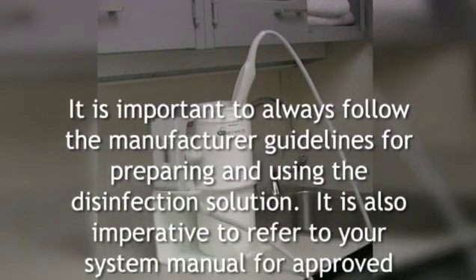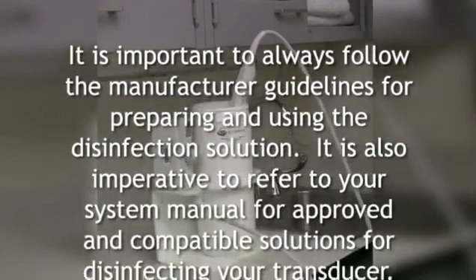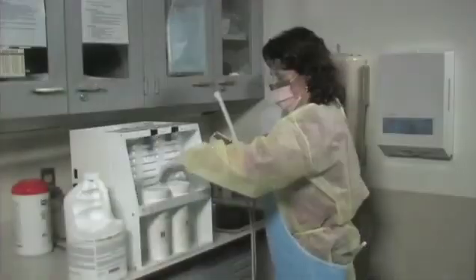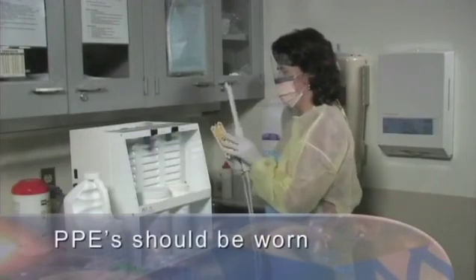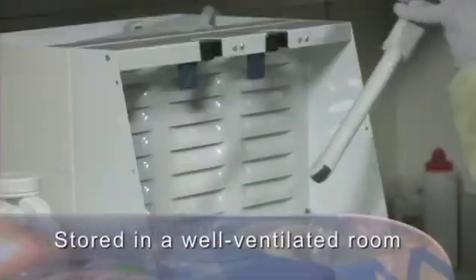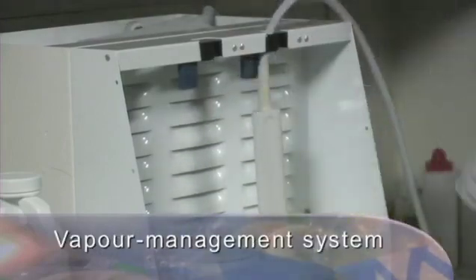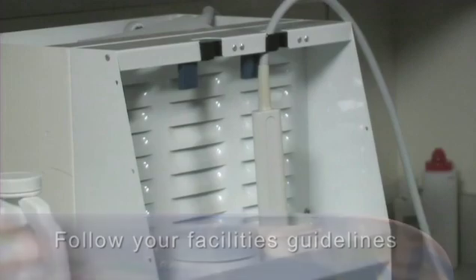It is also imperative to refer to your system manual for approved and compatible solutions for disinfecting your transducer. Personal protection equipment, PPE such as hand and eye protection, should be worn while working with these solutions. The solution should be stored in a well-ventilated room or in a device with a vapor management system. Follow your facility's guidelines to ensure proper storage.